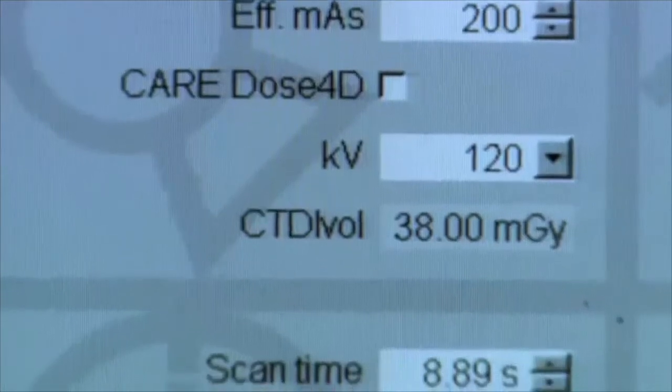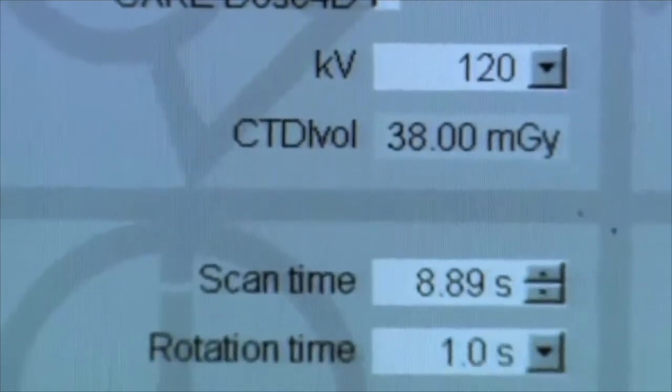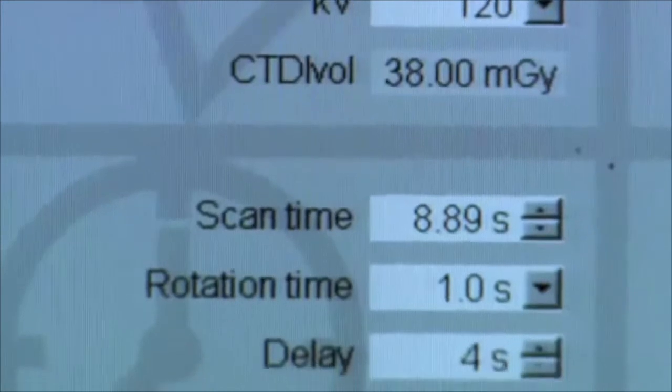Once the measurement settings have been set for the scan over the phantom, you should enter the measuring parameters into Ocean.